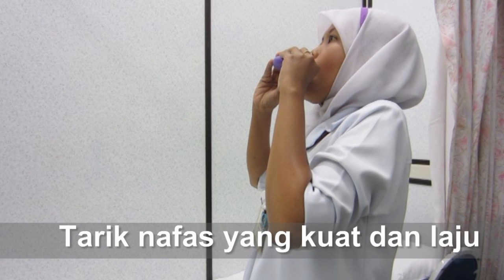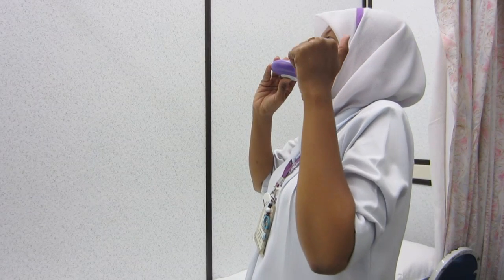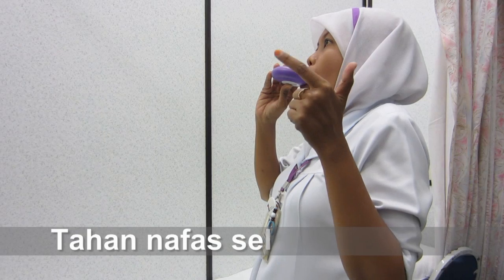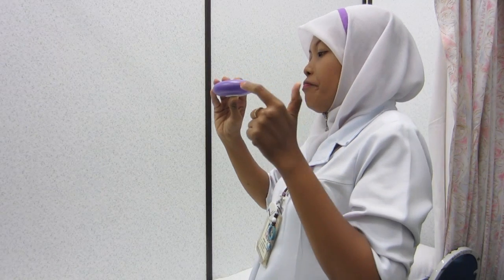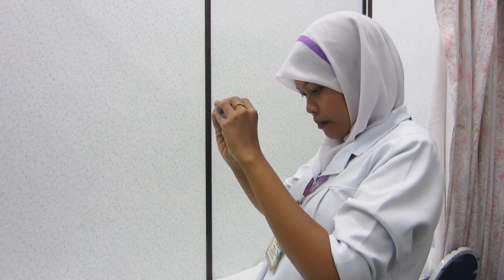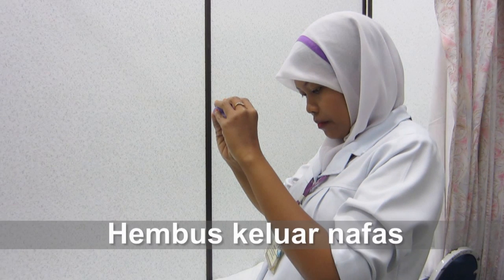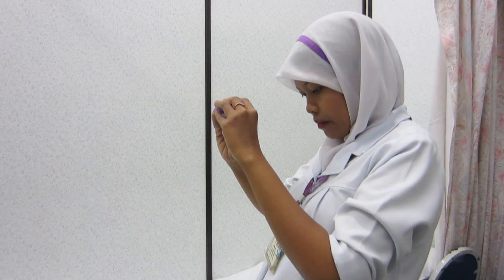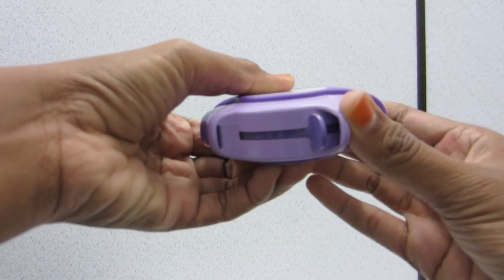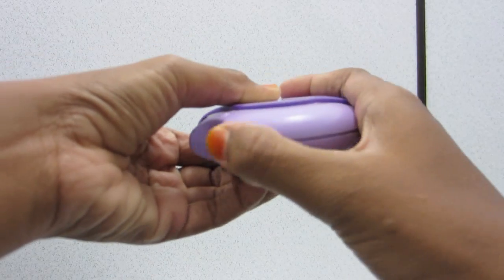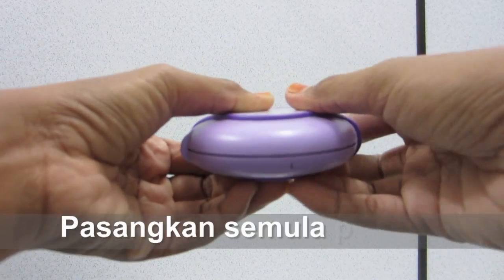Tarik nafas dengan kuat dan laju. Tahan nafas selama lima ke tujuh saat. Hembuskan nafas dengan perlahan. Pasangkan semula penutup.